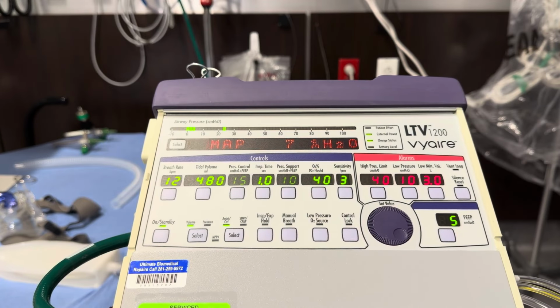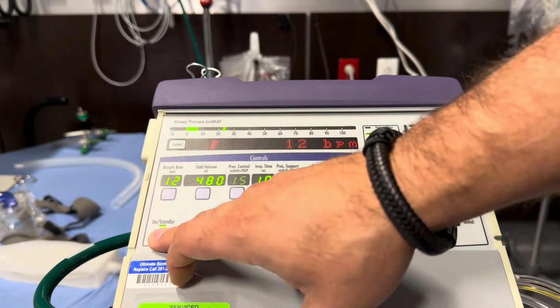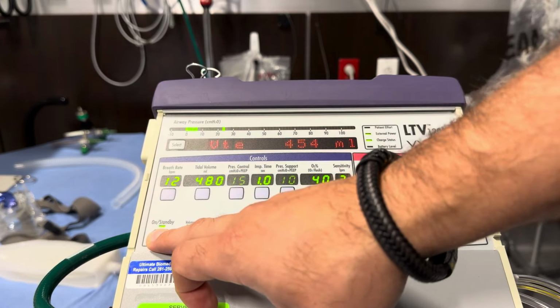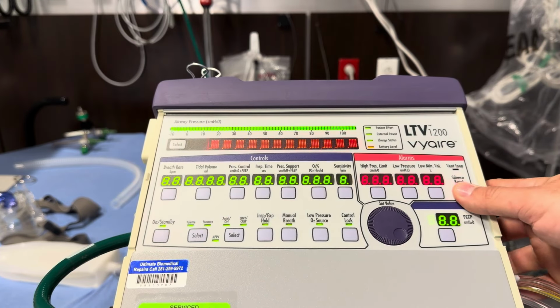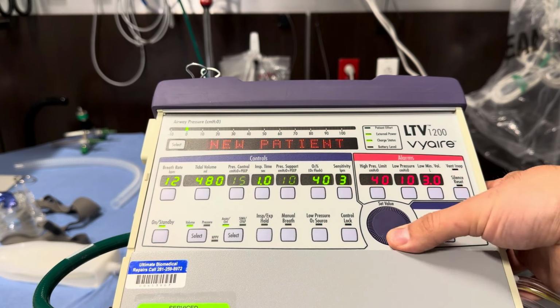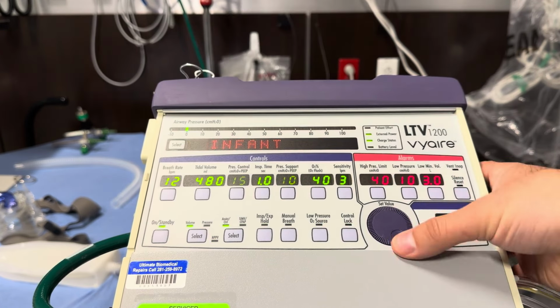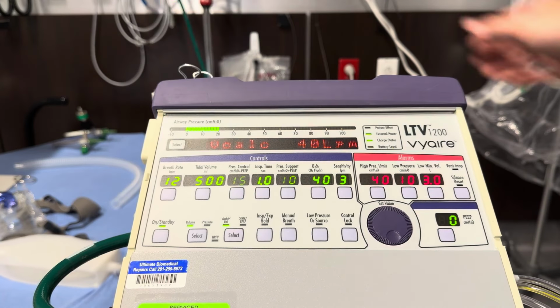Okay, now we're gonna go over a BiPAP order. Turn this off. Okay, so new patient. We'll use an adult again. Scroll over to adult, select.